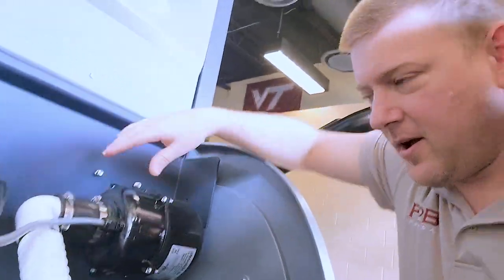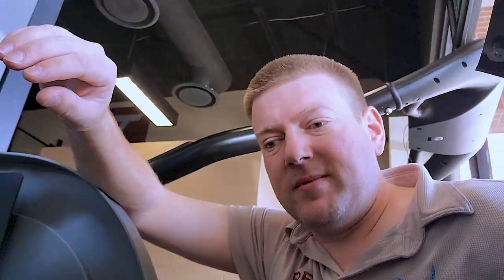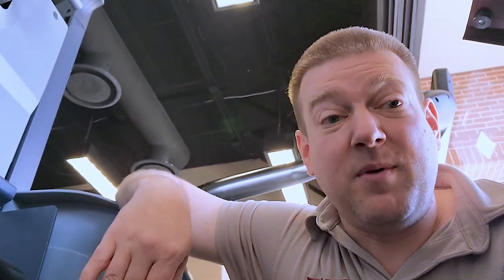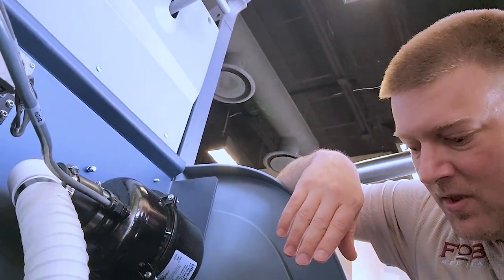So I put on the fancy pants and the unit does inflate. The entire bladder system works fine — it works beautifully. The incline works too. Now my first thought is that there's some sort of loss of communication between the controller and the treadmill. But if the incline motor works, that means it's something more relevant to the drive motor. The communications is usually a serial bus between the controller and the treadmill, like on cardiac stress testers and other devices. But we don't know for sure.